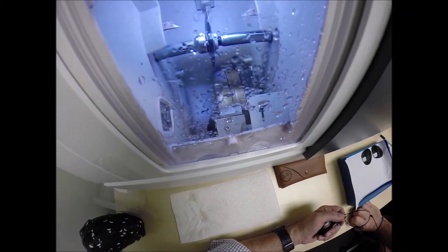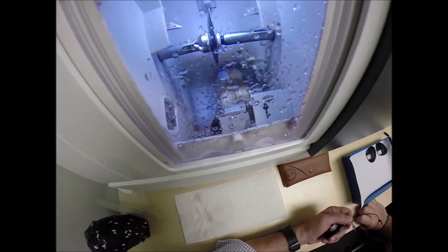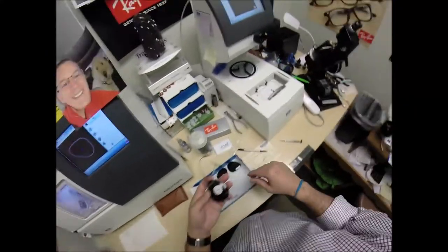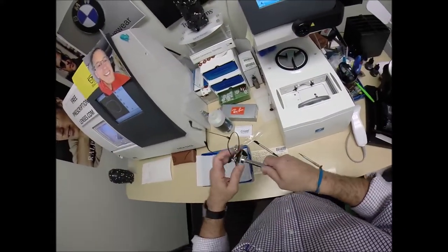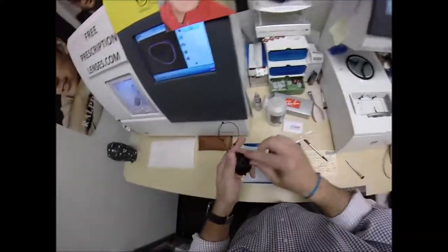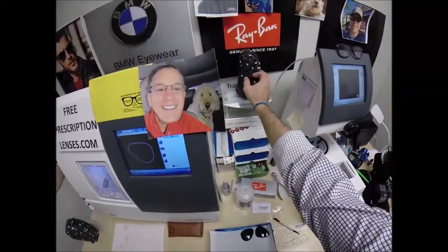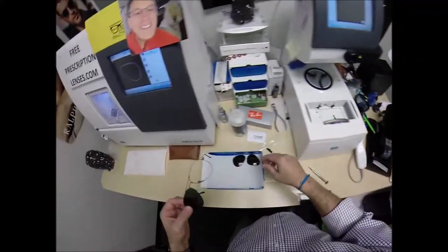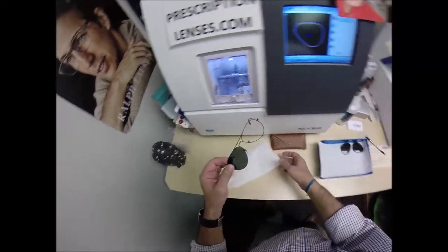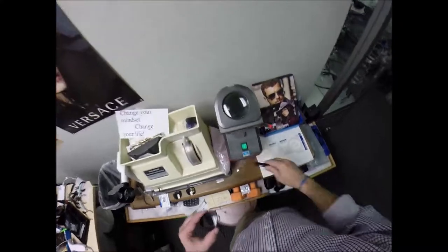And then just like before the cutting wheel starts up, the lens is going to drop down. Water is back there to catch the optical sawdust as it comes off the cutting wheel. Cue the water. And we're going to pop the block off. Use my hand-approved drying method. Throw that on there. Take the sticker. Add it to my collection which I've put up there now. And now I can't see anything. So, I'm going to come back down here.